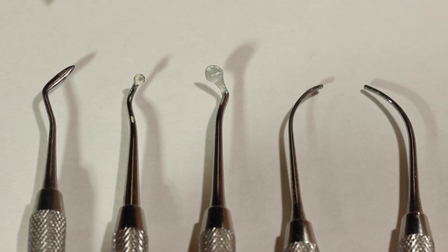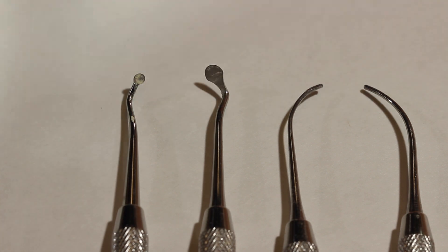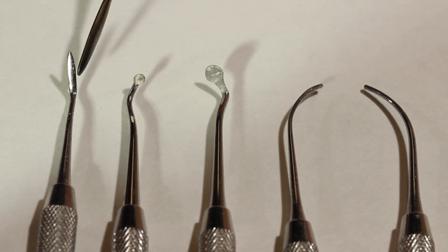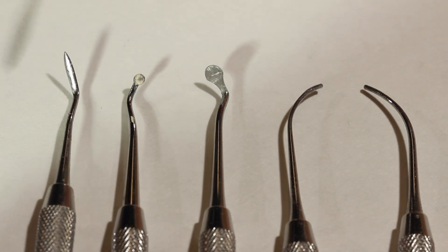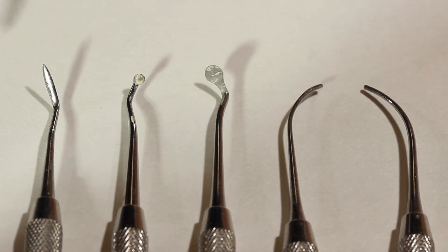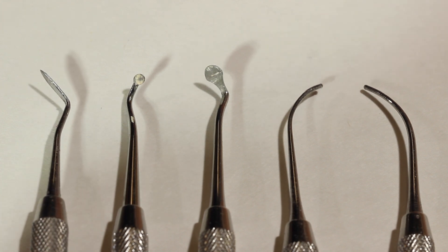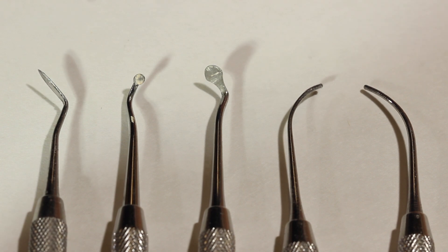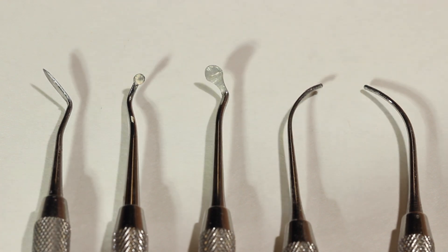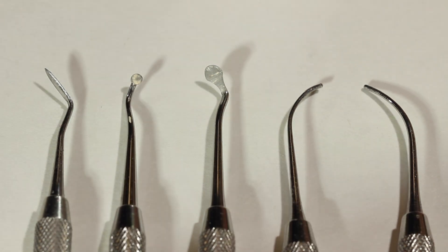It has two sides: it has a flat side here, and the other side which is 90 degrees from the other head, which is great when you're trying to manipulate around different cusps on the tooth. We'll also go over some of the anatomy of the teeth as well, so that when I'm talking about a specific area of the tooth we can all understand what that area is exactly.